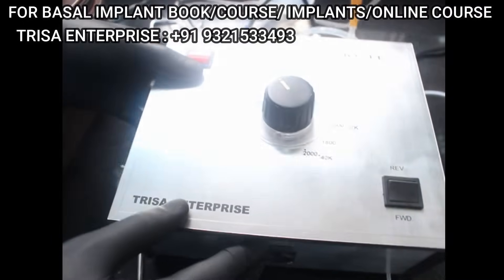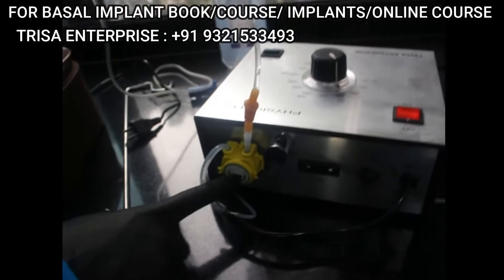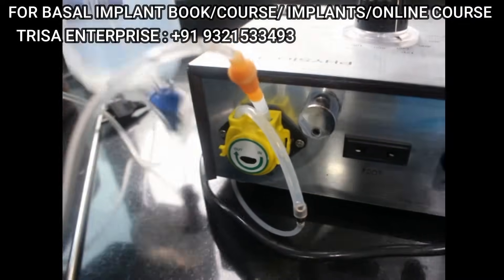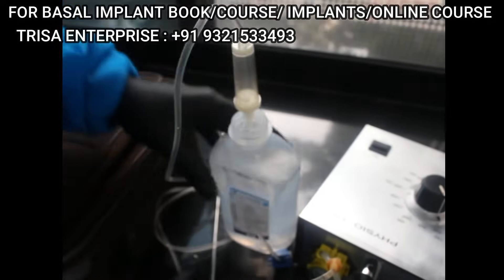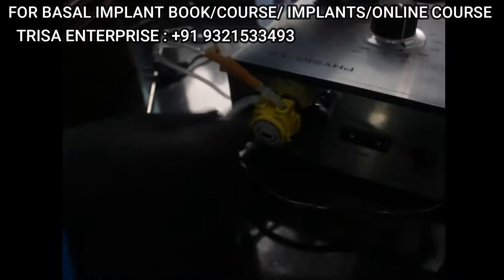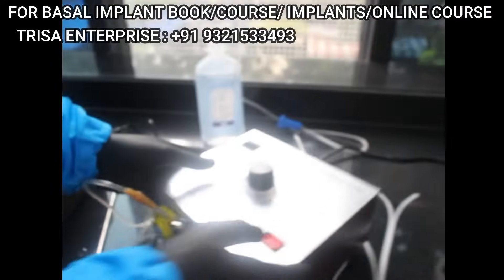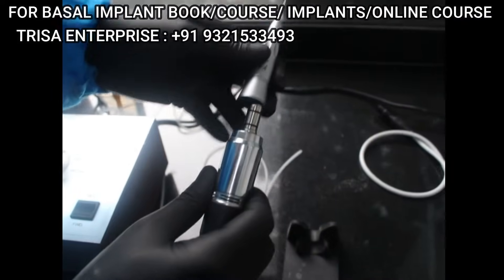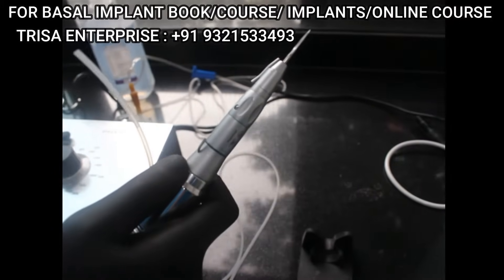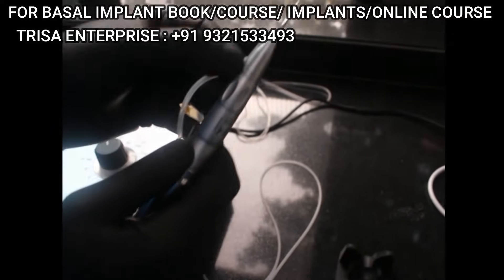Let me show you the attachments. This side has 'IN' written on it — you connect the saline line inside here. And this is the 'OUT' wire — the out wire goes straight into your handpiece. You can attach either the 1-to-1 handpiece or the 20-to-1 handpiece, and the motor will automatically sense which handpiece you have applied and work in that function. Then you connect the irrigation tube.